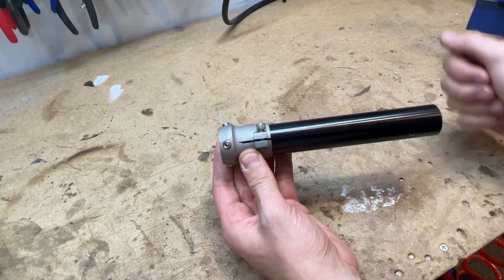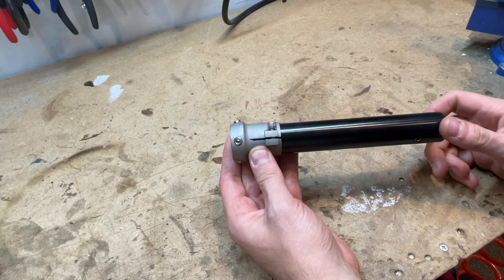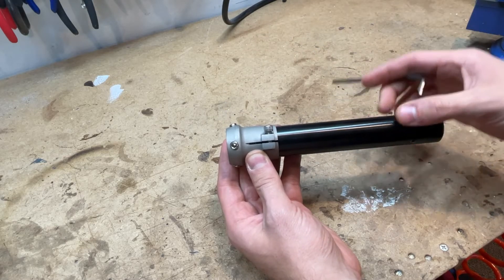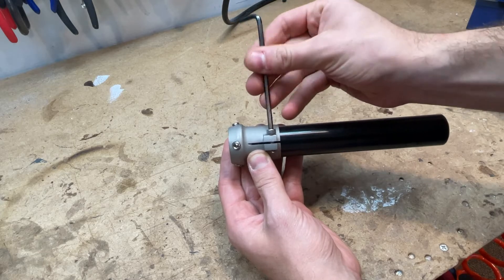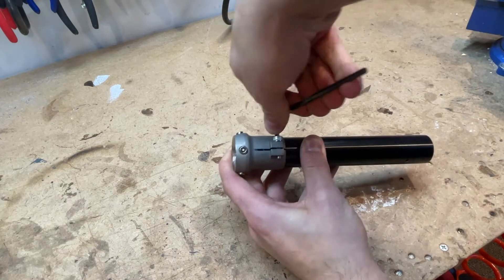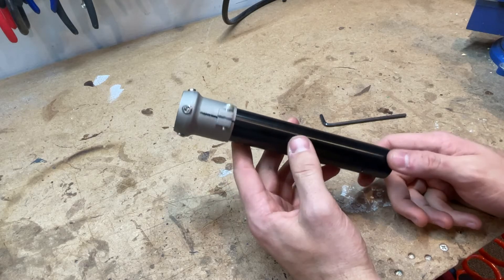That's where we adjust it to be the measurement that you had written down and selected. That way you have the ability to adjust inward or outward a couple of degrees, so we're going to set that right in the center. Then take your number four allen key and drive that locking screw in — you really want to snug this up and make that nice and tight.